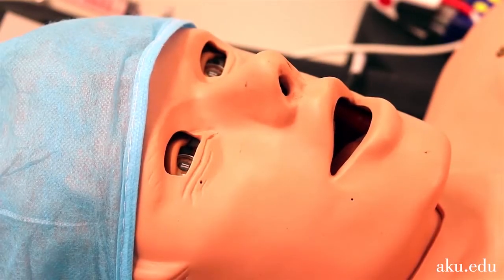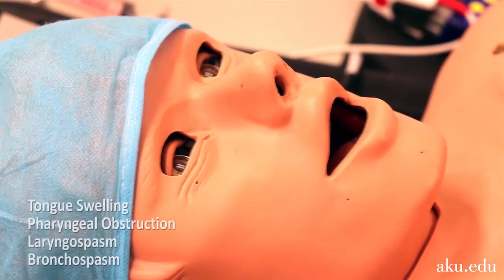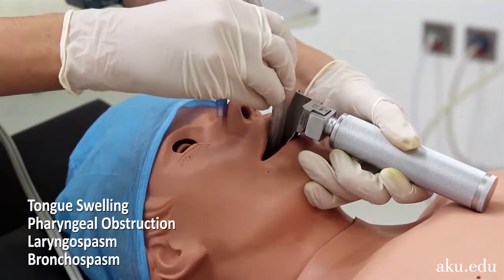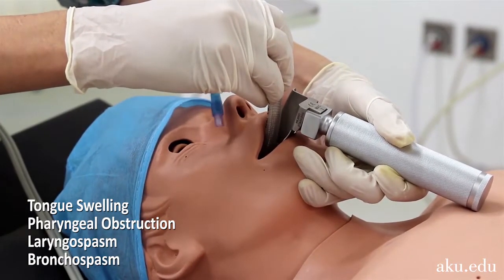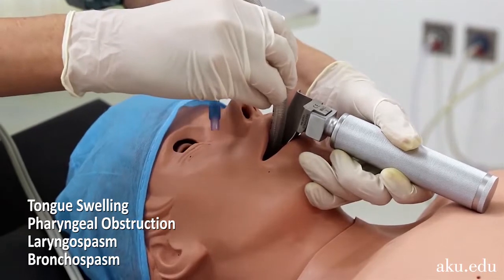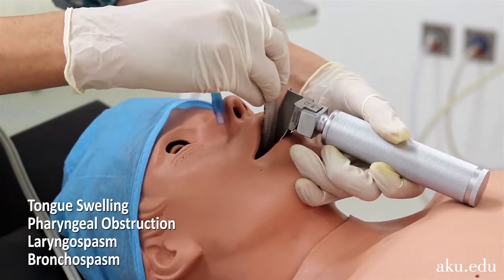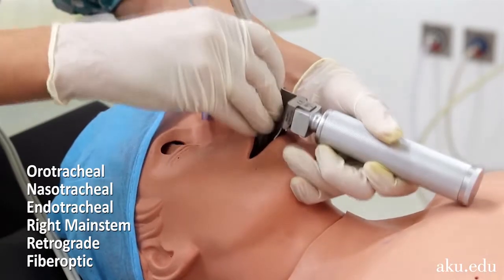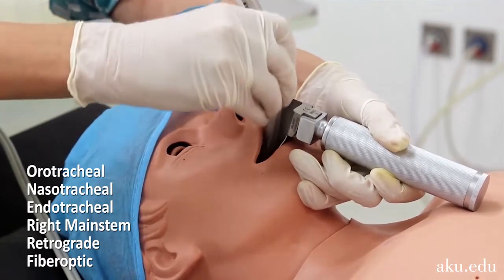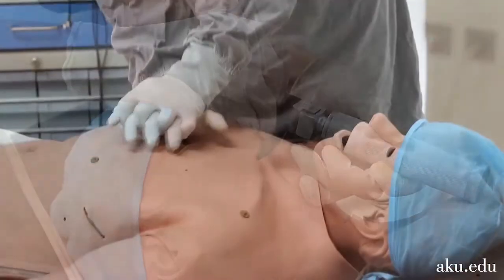The HPS can also generate various physiological airway conditions, including tongue swelling, pharyngeal obstruction, laryngospasm, and bronchospasm. To cope with such abnormalities, the HPS can facilitate orotracheal, nasotracheal, endotracheal, right mainstem, retrograde, and fiber optic intubation.